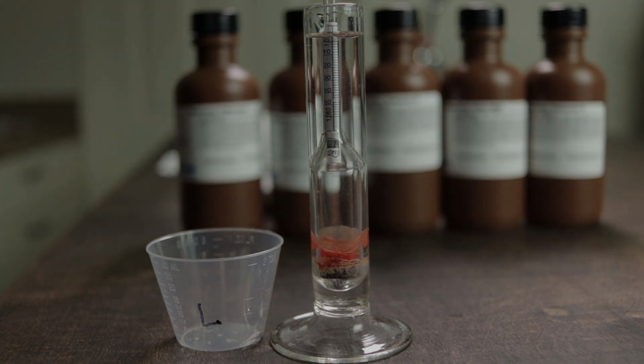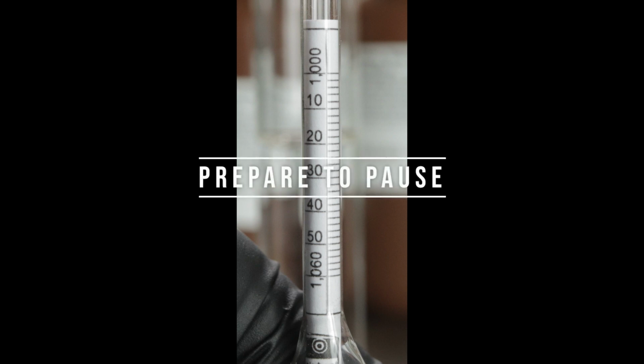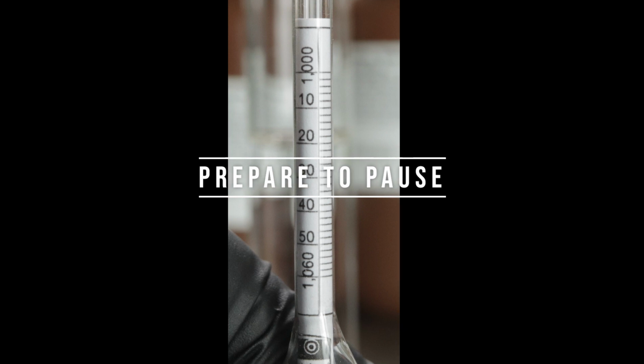To read the hydrometer, you're going to want to see where the meniscus of the sample intersects with the scale. Taking a closer look at the scale, where we see the 10, that actually indicates 1.010, 30 would indicate 1.030. There are 5 hash marks in between each of those primary markings so that we can record the specific gravity at 3 places past the decimal. You'll want to pause the video as each of the results comes into view. You'll also want to record the data in the urinalysis assignment question number 5.